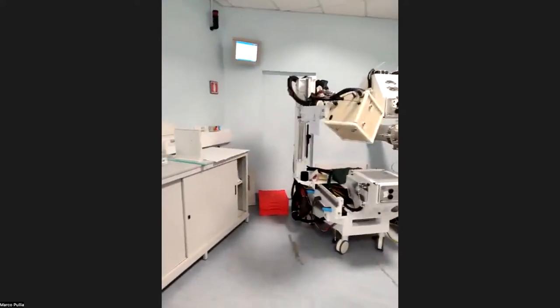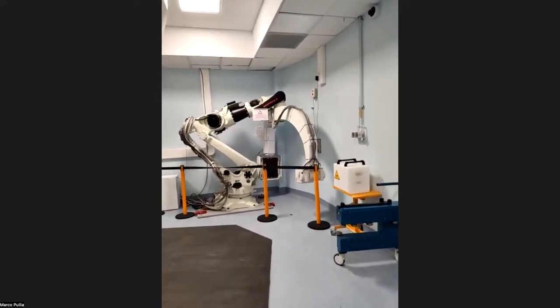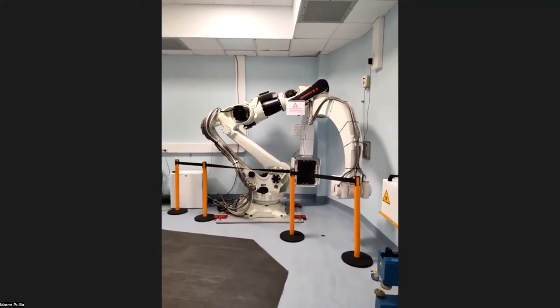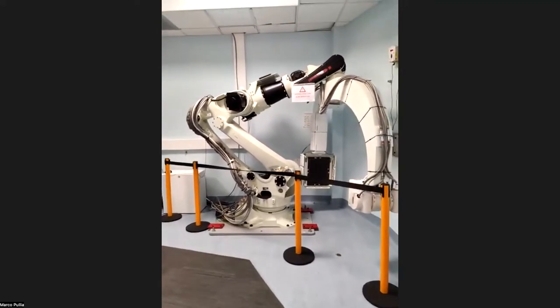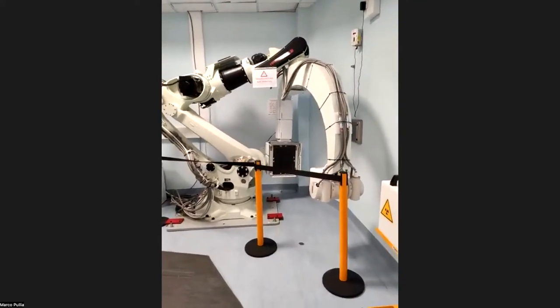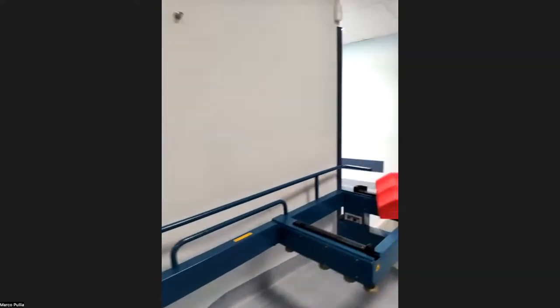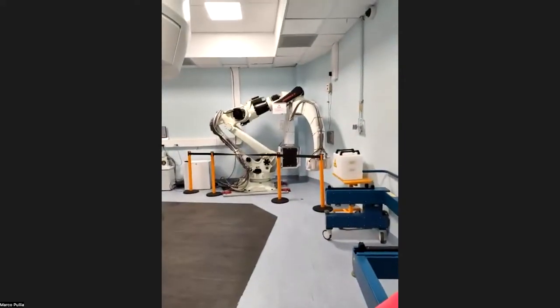What else can we see? Well, we have a C-arm, a robot, let's say, which is being installed. We have a similar system in room number 2. And since our doctors liked it, we are installing it also in room number 1. This is an X-ray tube here and a flat panel, and they can be used to make a cone beam CT as well, which is what our doctors like.